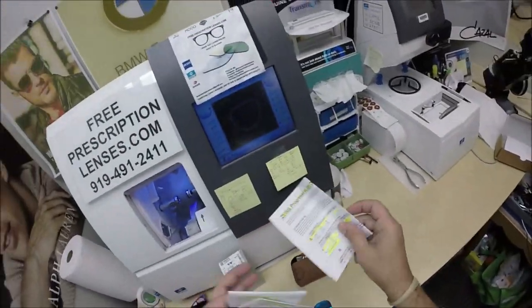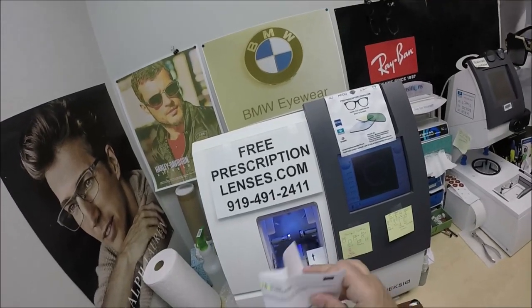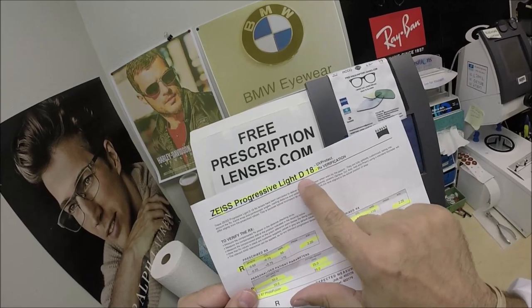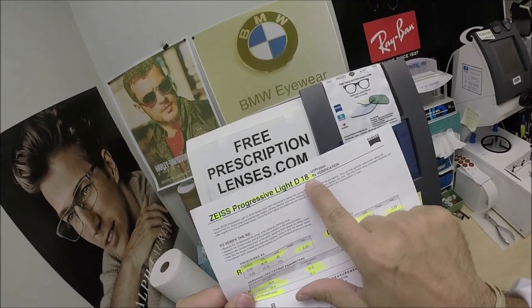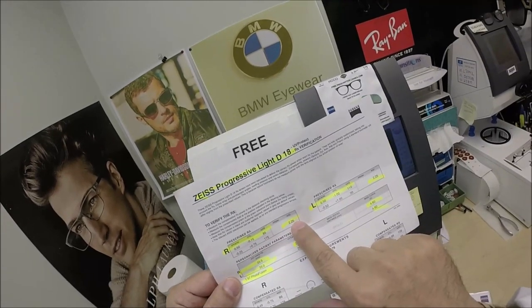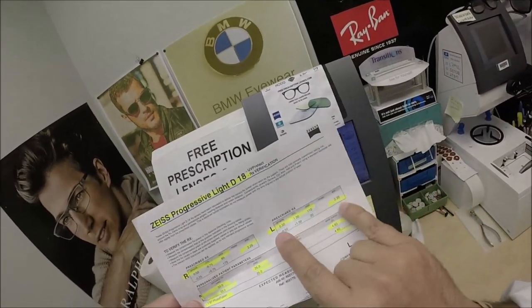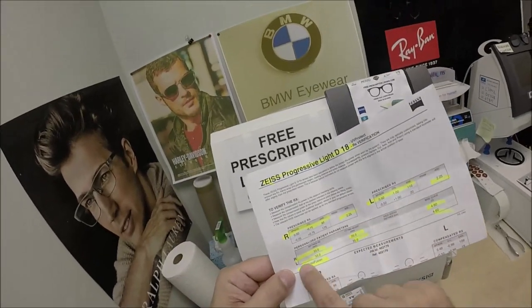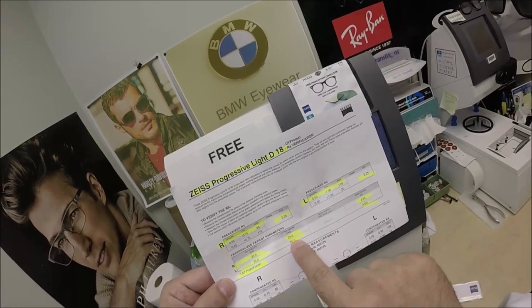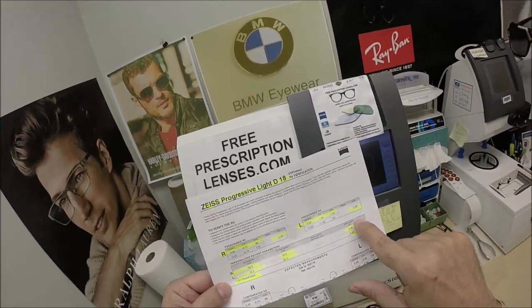You're going to get all the manufacturer's original packaging from Zeiss. He's got the compensated form, since these are digital free-form progressives. He's getting the Progressive Light D Digital, 18 is the corridor height. I've highlighted the prescription for his right eye, his bifocal — invisible bifocal strength — for the left eye, progressive power, the pupillary distance for the right, the left, the seg height, which is where the optical center begins, and the base curve of the lens.